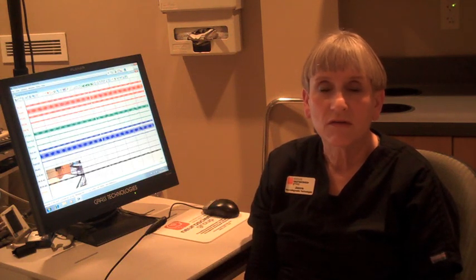Then we take a recording for 30 minutes. In that time the room is darkened and it's usually nice and quiet. Very often people do fall asleep, so it's a completely painless and hopefully very relaxing procedure. There are absolutely no side effects to an EEG, although patients will leave with slightly dampened hair as we clean all the paste and marks off their scalp — that's the only side effect.